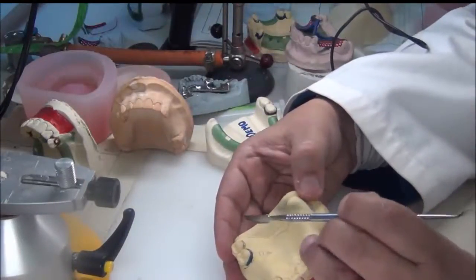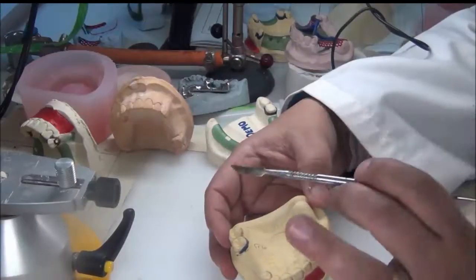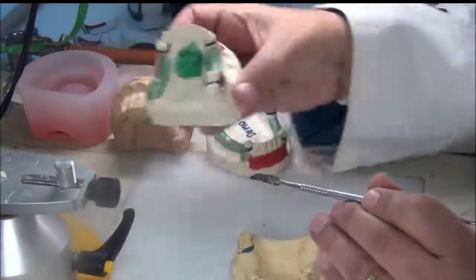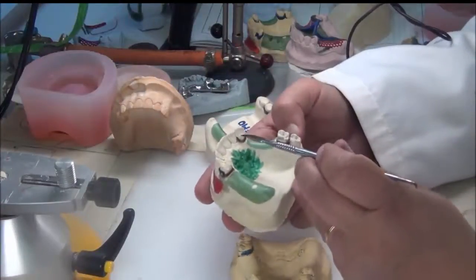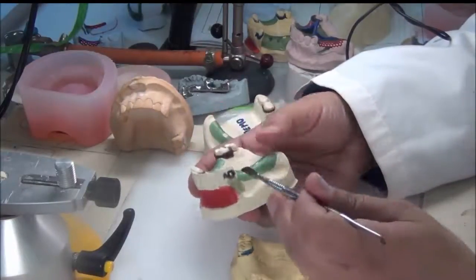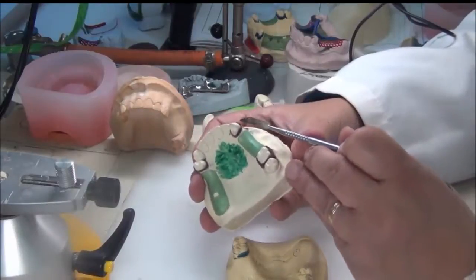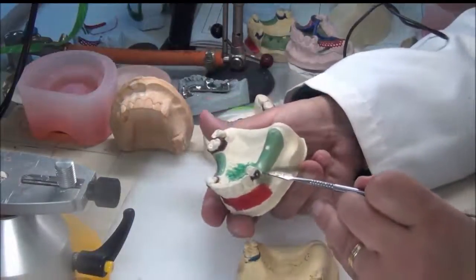Now please add wax for 10 minutes. Place the wax wherever metal is crossing — remember the design we drew. The metal will cross over the premolar abutment, the canine on the other side, and the molar on this side. For all abutment teeth, fill in all undercuts proximally and lingually. For anterior abutments, the buccal undercuts are also included in the parallel block out.